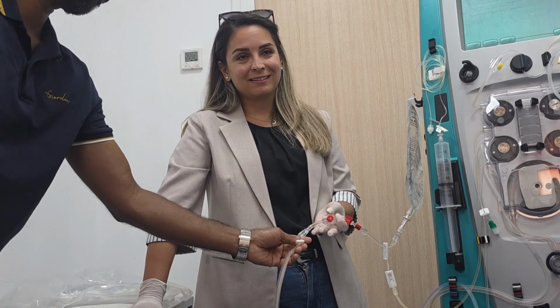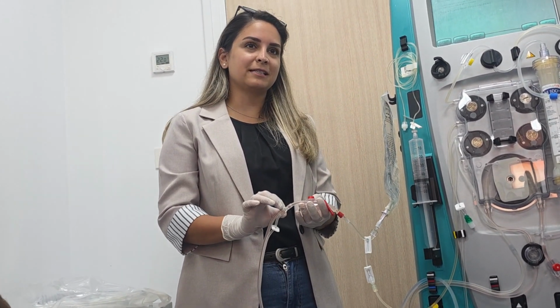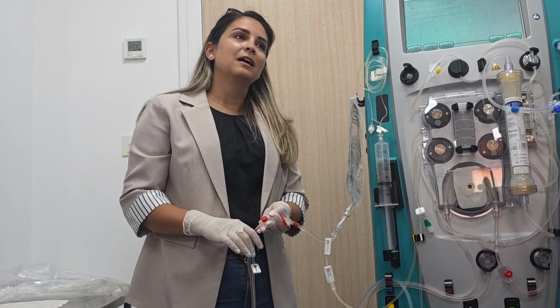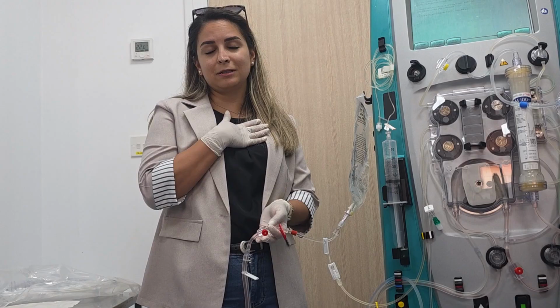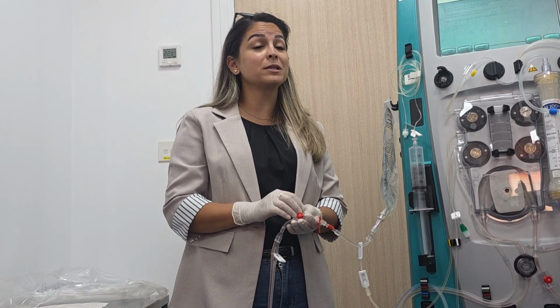The replacement fluid is mixing there, no? Yes, so we are taking the sample from there. There is still a chance of dilution, but I don't think so, a little bit. The valve will be like that, it will not be much. That we need to check actually. To be honest with you, I didn't take a sample from here, so I didn't know what the value was.